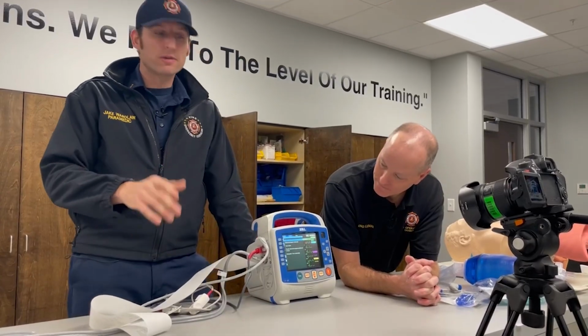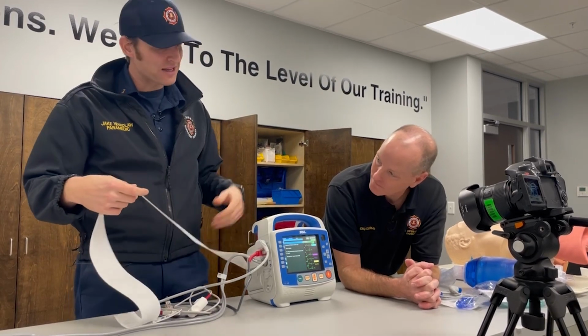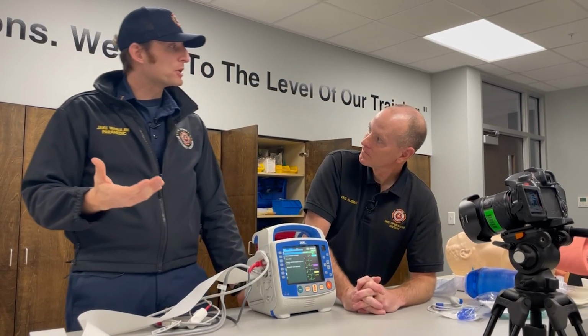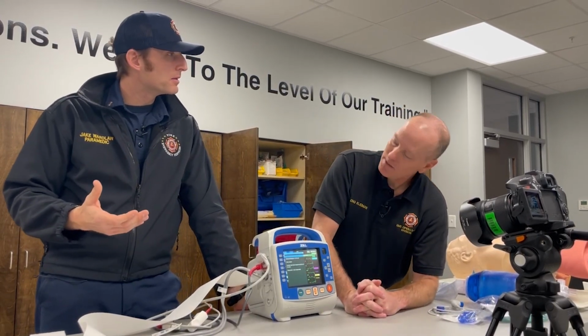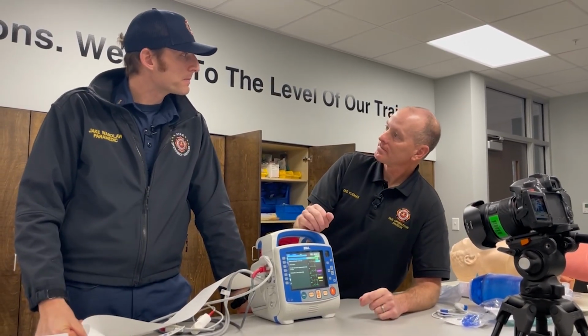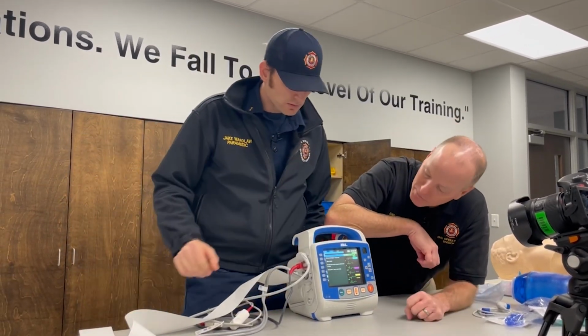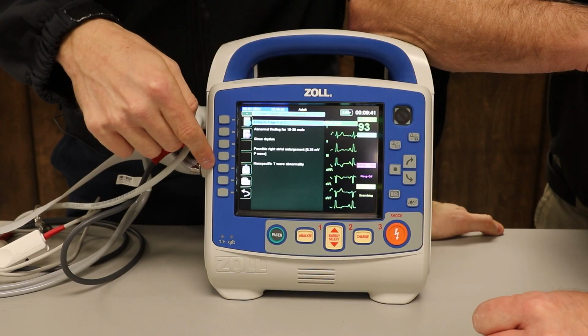So now that we've gone over general information, you're going to get a printout that has that same information that we just toggled through digitally on the screen. We've got to figure out how in the world do we transmit? And that seems to be the problem child for everybody. So let's make this simple. Show me, do the KISS principle, show me how to get this. So simple. See the envelope?